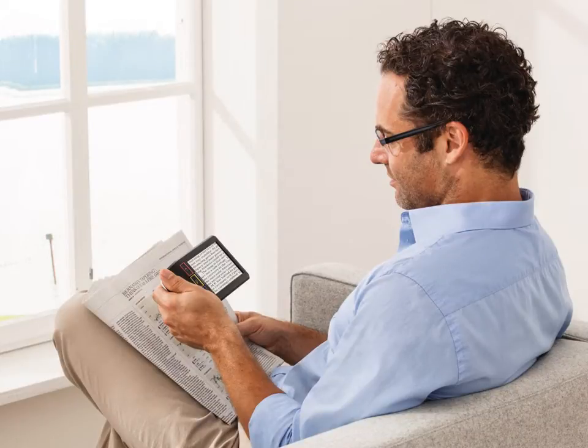Another advantage of this flat screen view is that the viewer may adopt a normal viewing posture and also maintain a binocular view when both eyes can be used together, offering superb viewing comfort. When patients adopt a normal posture for viewing the screen, it follows that they would benefit from the spectacle correction for that distance. In this case, the patient's reading glasses should ideally be worn.